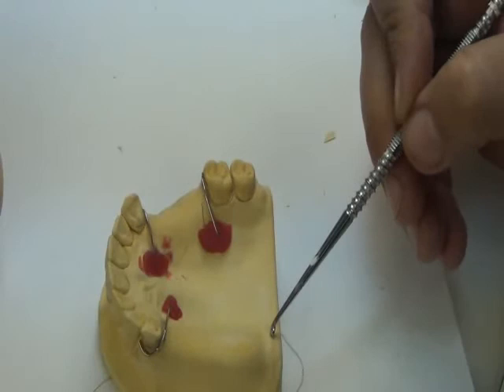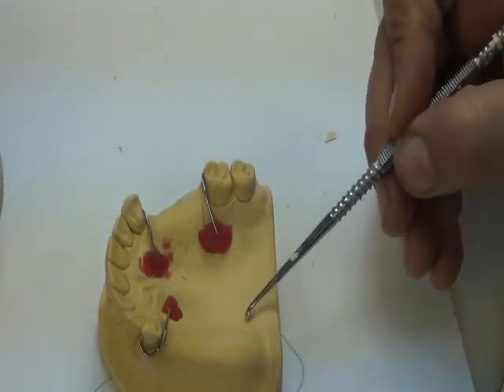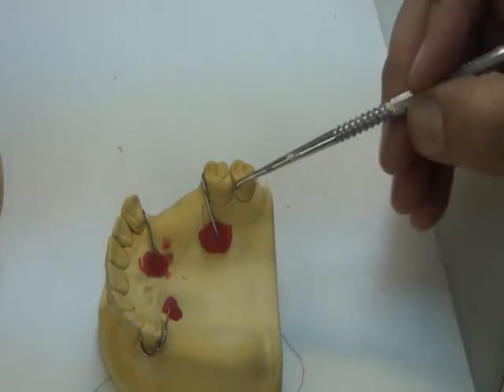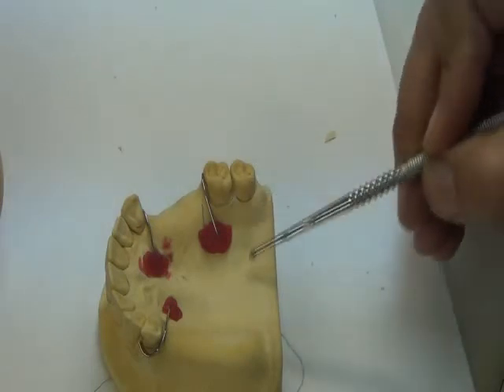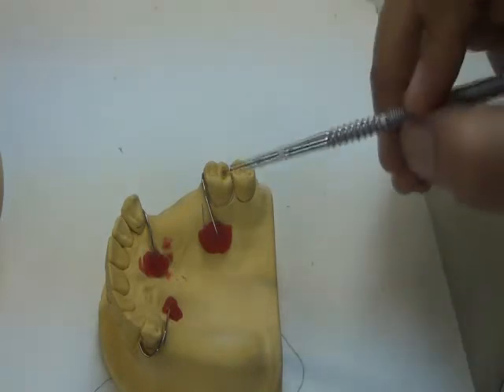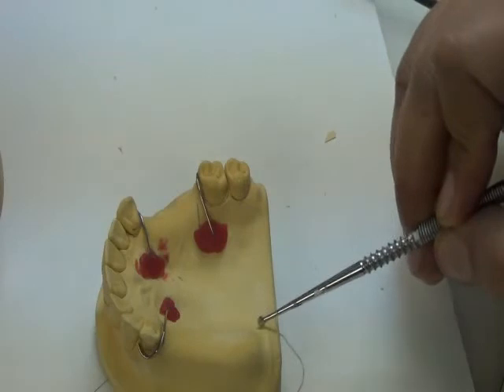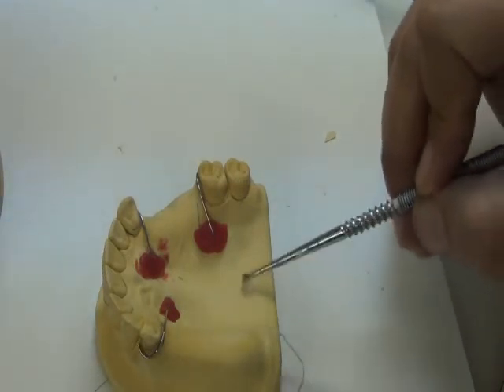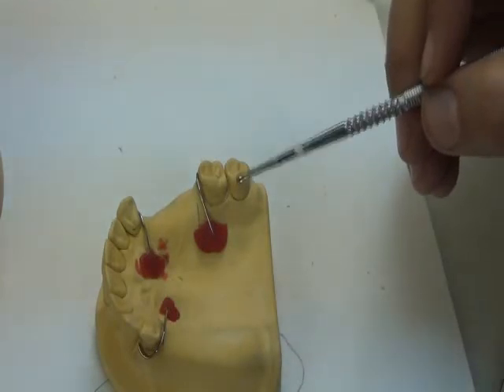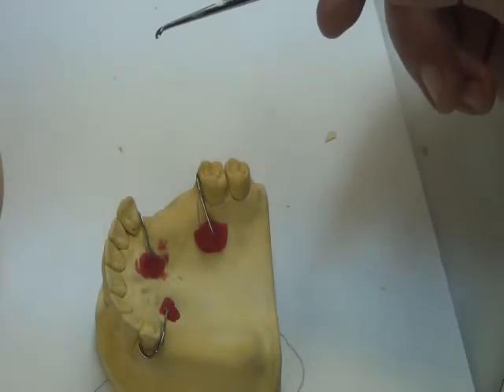Palatally, how much do I extend backwards? We go back to complete denture. This follows that we are looking for a vibrating line. So if I'm extended on two teeth, I use the vibrating line as my posterior extension of the denture. If I'm using only one tooth, I come from this tooth and carve it. But in this free end saddle area, I'm not going beyond the vibrating line. So in free end saddle areas, we follow complete denture rules for extension of the denture bases.